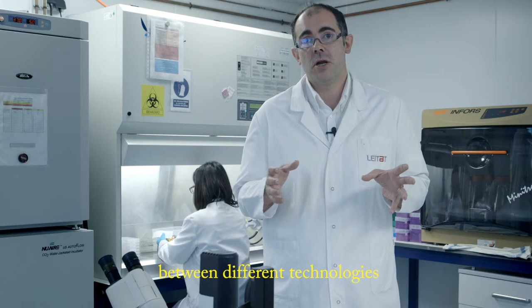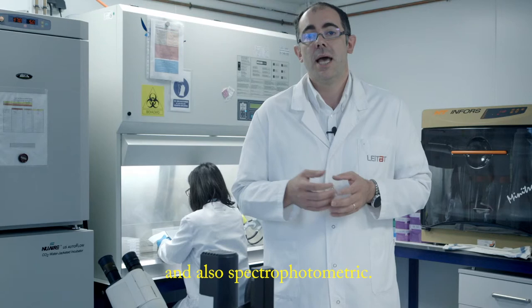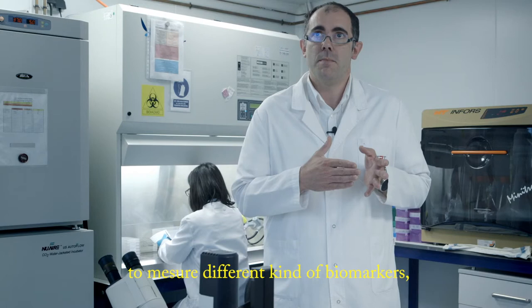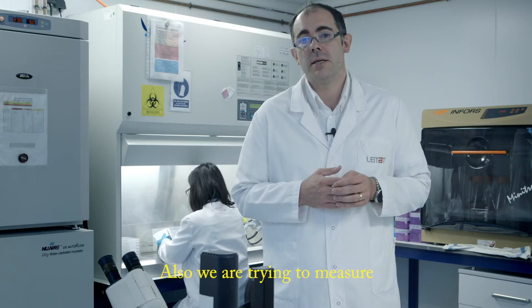Nowadays we are working with different technologies using photonics for instance, electrochemical approaches, and also spectrophotometric. Now we are ready to be able to measure different kinds of biomarkers, different kinds of proteins.